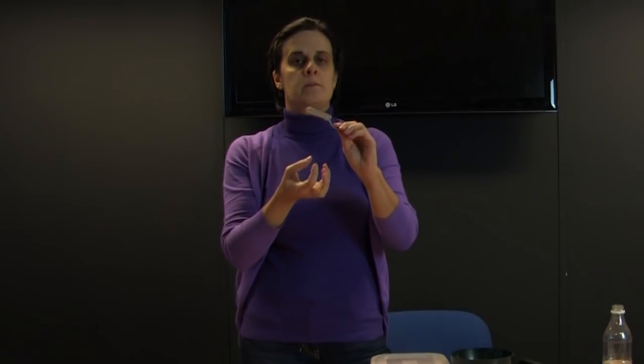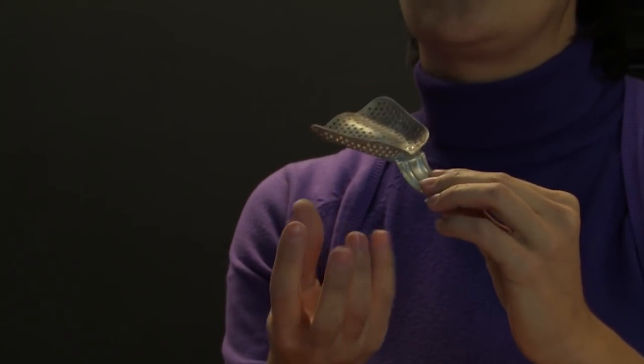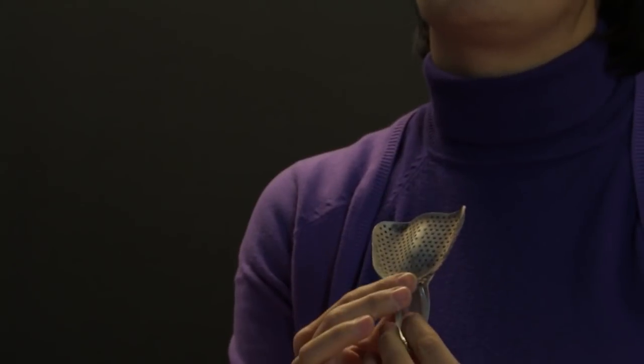To go through the trays once again — this is an upper metal edentulous impression tray. This one happens to be perforated, and the reason that impression trays are perforated is that when the material is placed in the tray and inserted into the patient's mouth, the material will squeeze through the holes, and when it sets the material and the tray will stay as one.